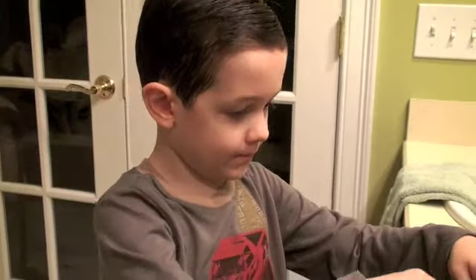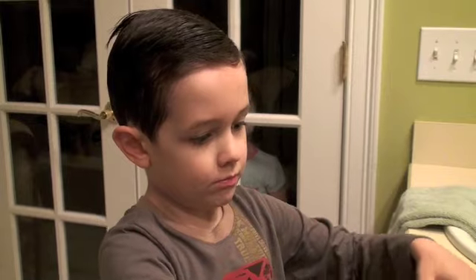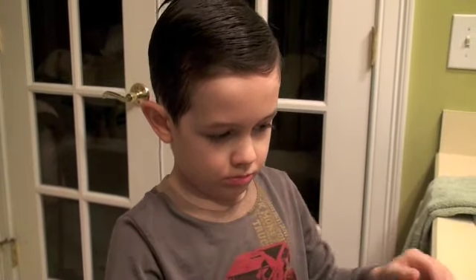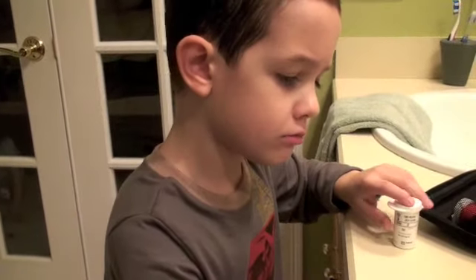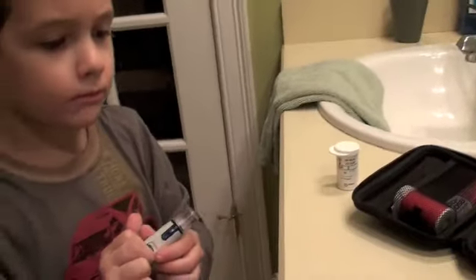Okay, well let's check and then we'll do the pod change. It's about time to check sugar anyway. And this is my pricker. Okay, I'm going to check my sugar for goodness sake.